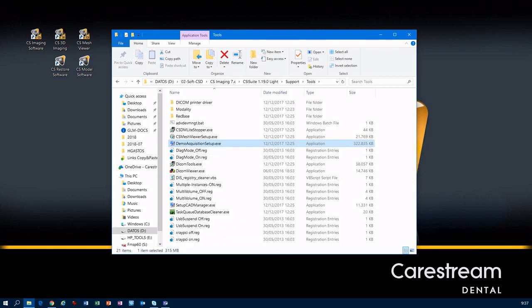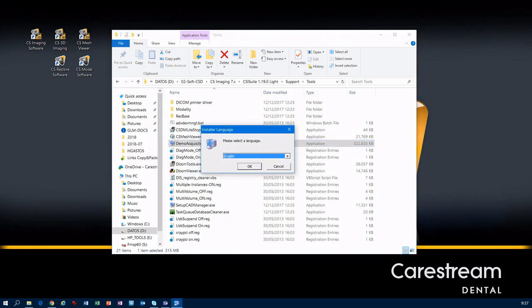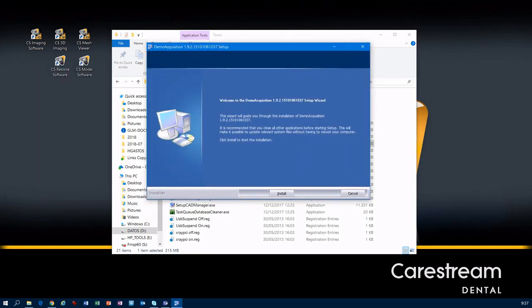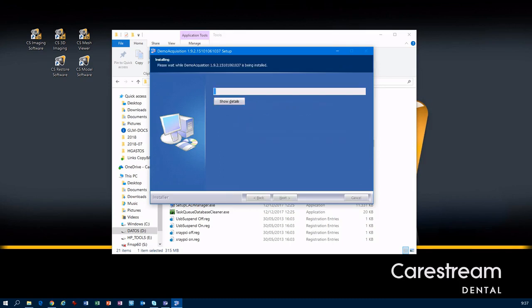Run as an administrator and it will begin to install the software. Just click Next and click Install.